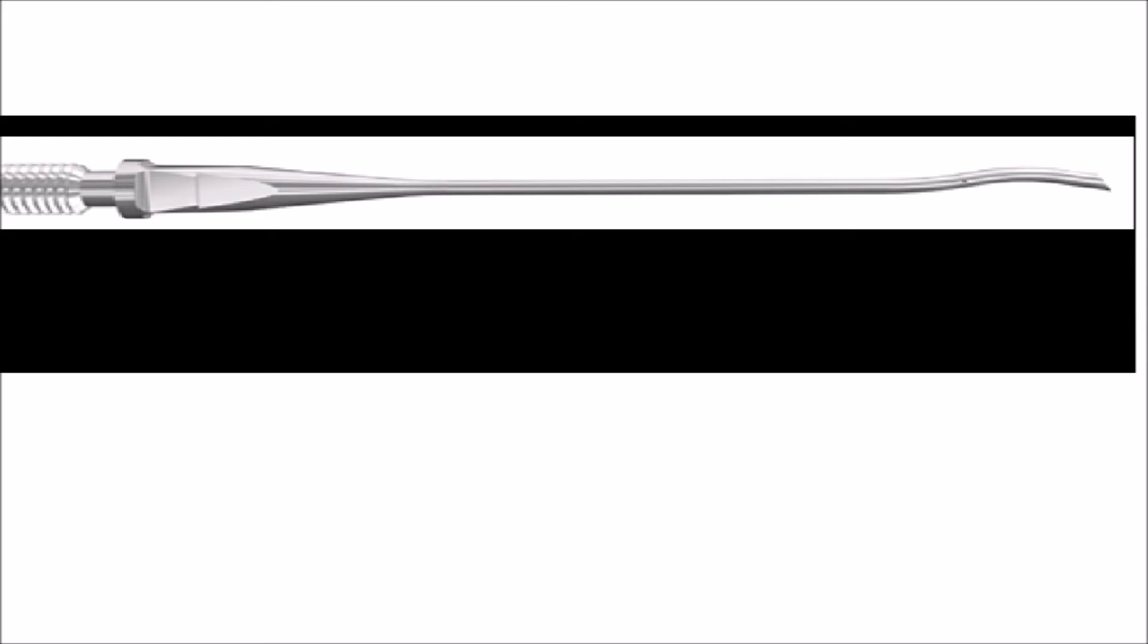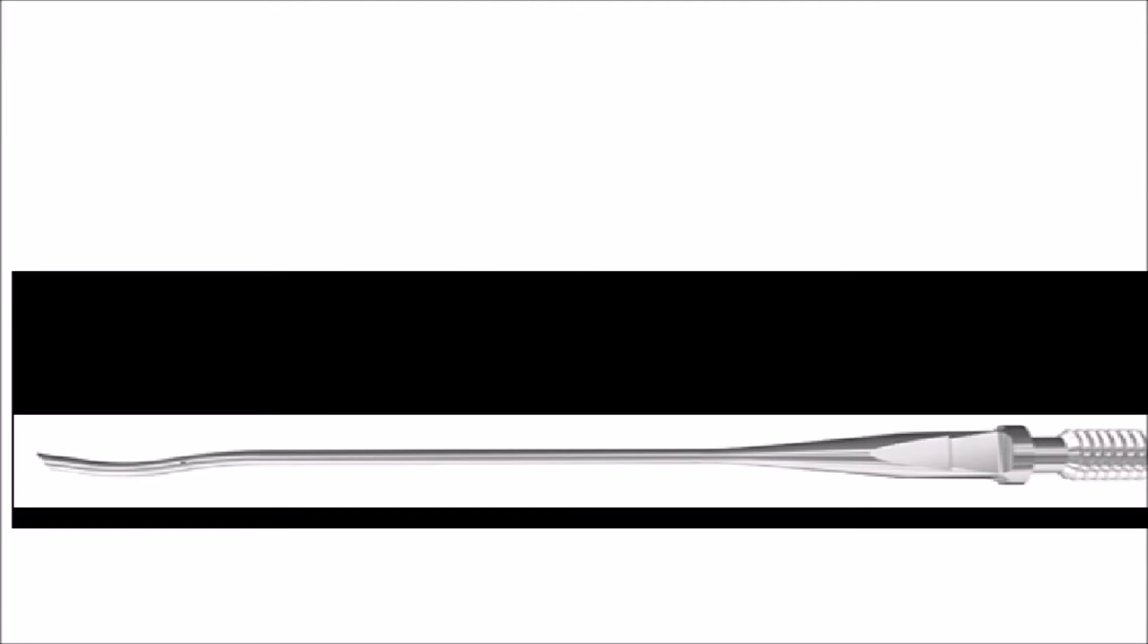This is a typical position of the tip, because it's really a sculpting tip. But I'm actually going to flip it upside down. You can see it's a 45 degree tip, and you can see there's a little bit of a curvature to the tip, and it's a little bit pointy.